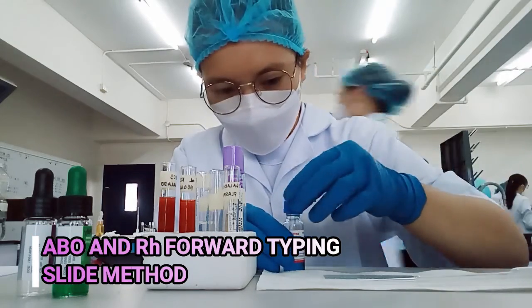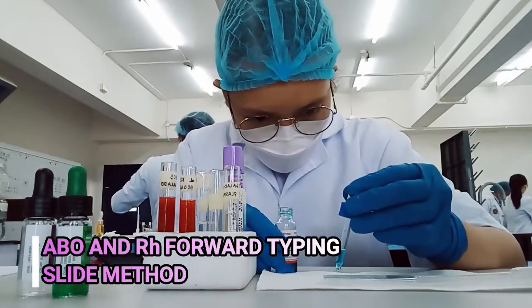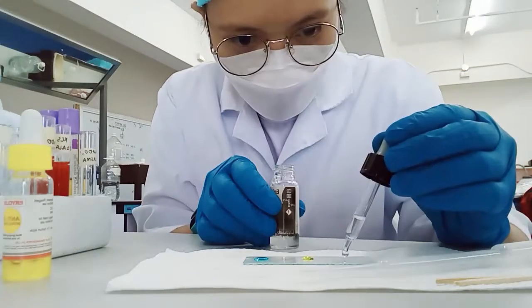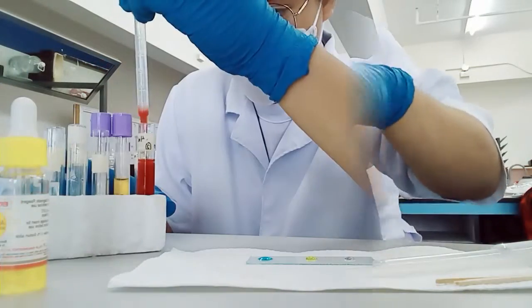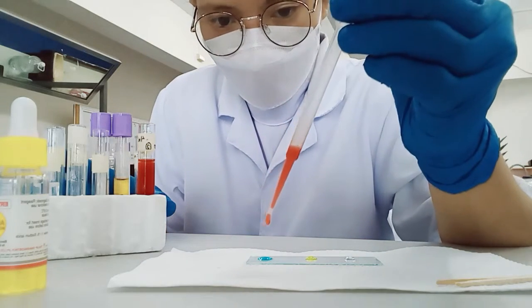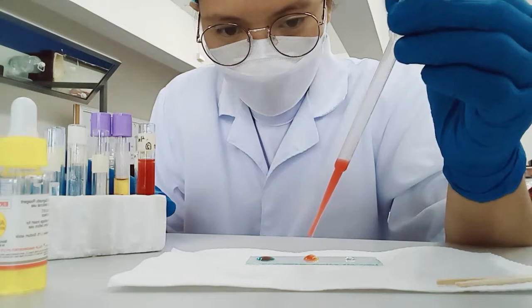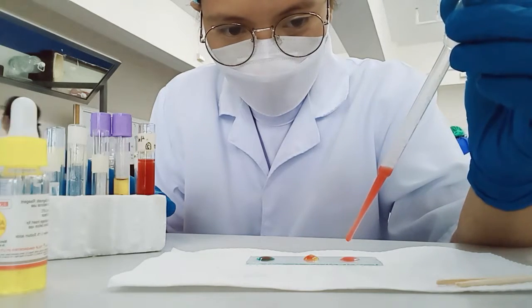ABO and RH forward typing, slide method. Place 1 drop of anti-A, 1 drop of anti-B, and 1 drop of anti-D on a clean labeled glass slide. Then add 1 drop of 2 to 5% red cell suspension of red blood cells to each of the drop of the reagent.